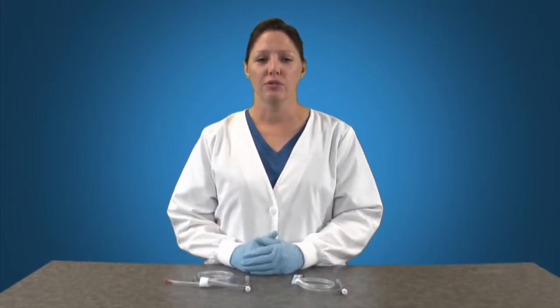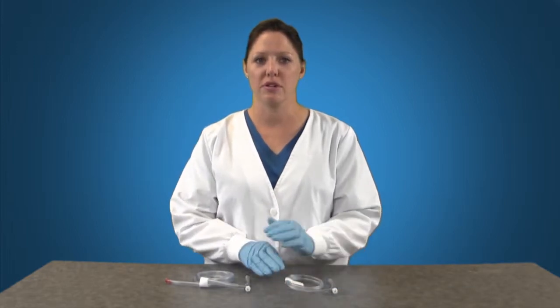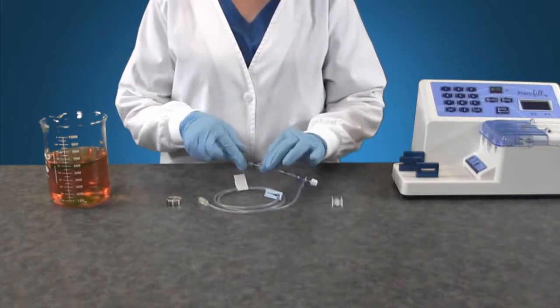There are two types of tubing sets available. High flow large bore which is used for solutions that are viscous or have fill volumes over 5ml. Low flow small bore sets are used for non-viscous solutions with fill volumes under 5ml. The tubing set that you select is based on fill volume and solution viscosity. Initially we will demonstrate a 5ml fill volume with a non-viscous solution.